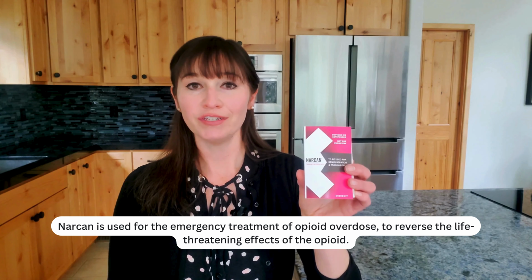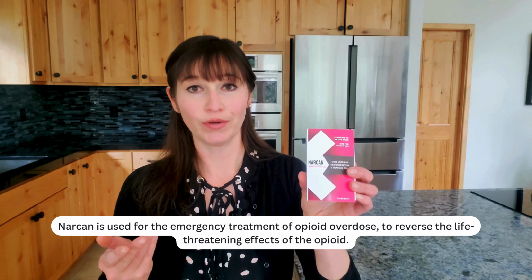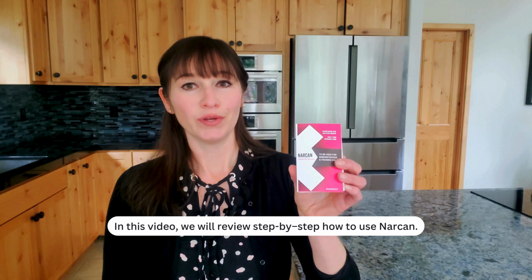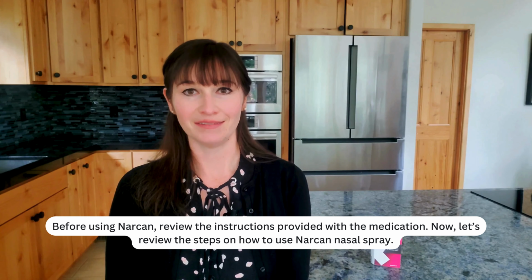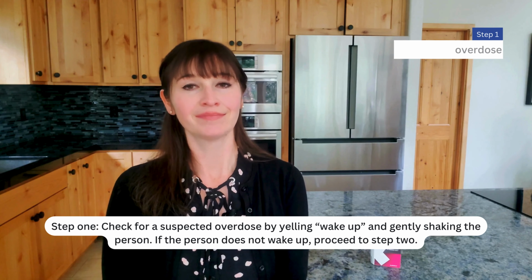Narcan is used for the emergency treatment of opioid overdose to reverse the life-threatening effects of the opioid. It's available as a single-dose nasal spray. In this video, we will review step-by-step how to use Narcan. Before using Narcan, review the instructions provided with the medication. Now, let's review the steps on how to use Narcan nasal spray.